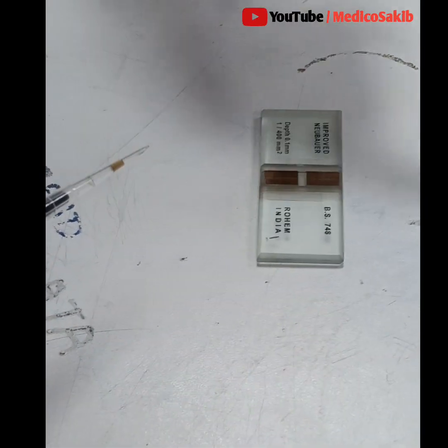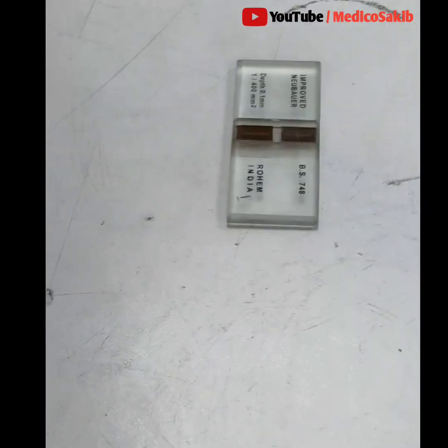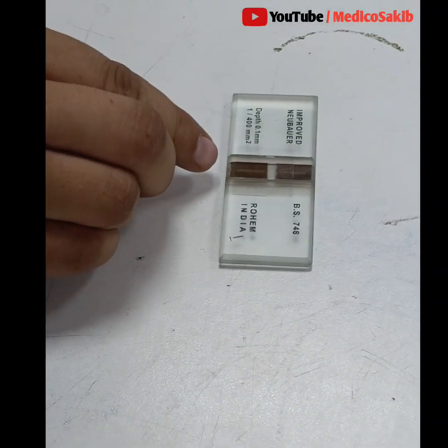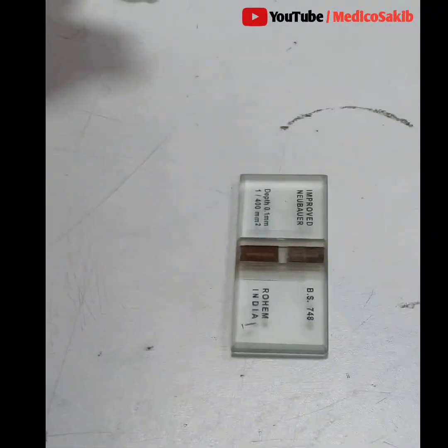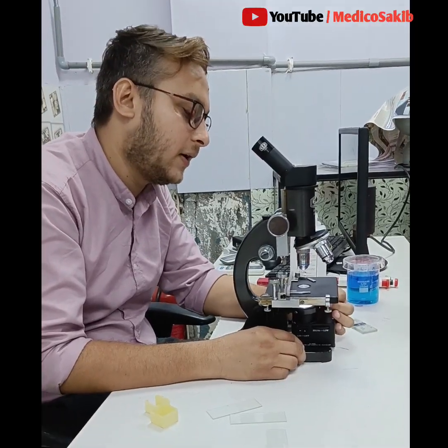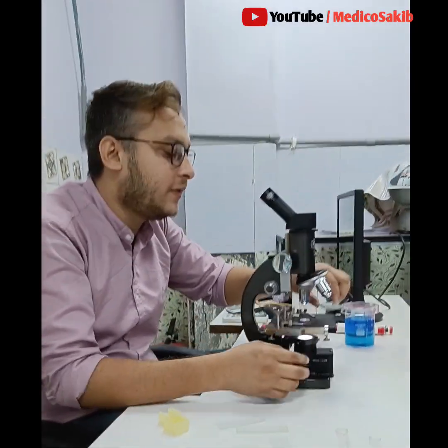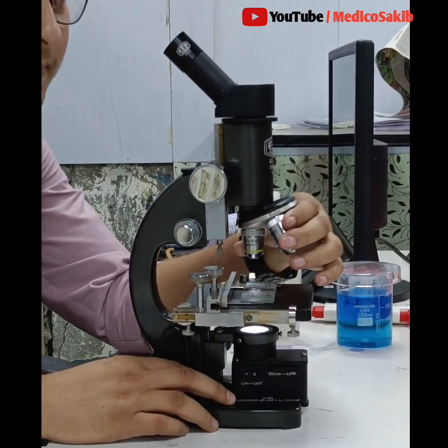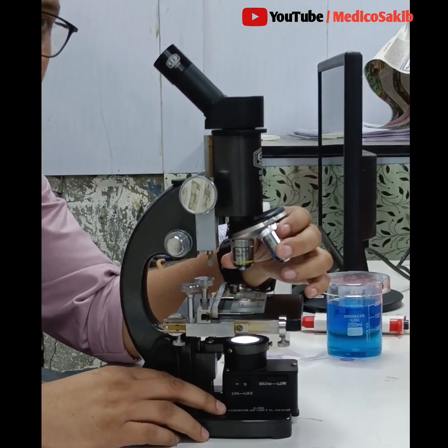So now dilution is done. Then take an improved Neubauer chamber, cover it with a cover slip and slightly charge the area. Now after charging the Neubauer chamber, wait for minimum 2 minutes for lysis of the other cells and settling down of the WBC. Then take the Neubauer chamber and set it under the microscope.